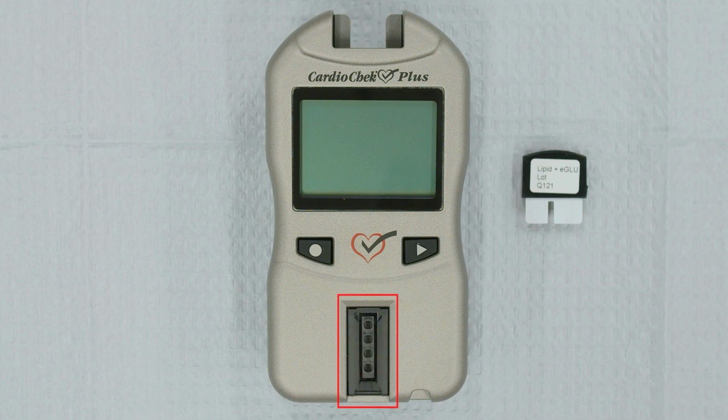The Reflectance Test Strip slot is where you'll insert the gray check strip when checking the analyzer's electronic and optical systems, and your Reflectance Test Strip when it's time to run a patient test. The Electrochemical Test Strip port is where you insert the PTS Panels eGlu test strips. The USB port allows you to connect to a PTS Connect printer.